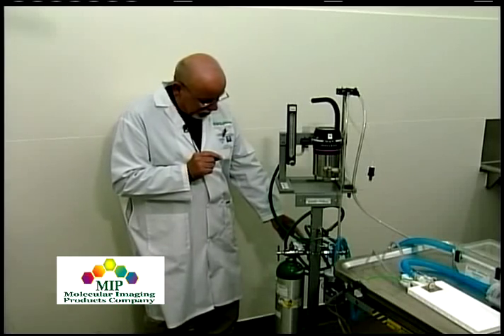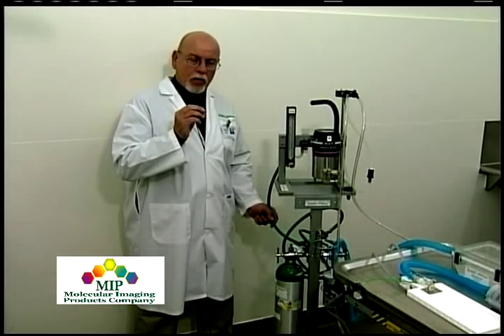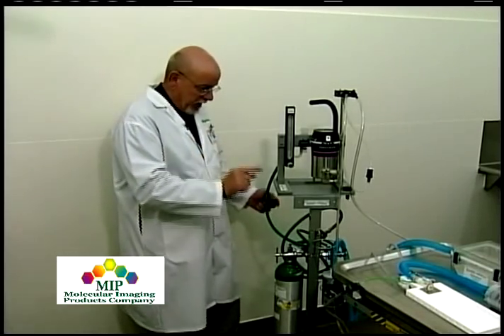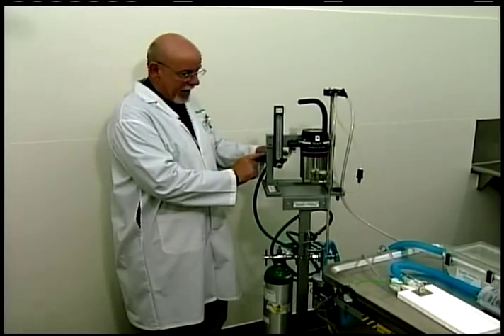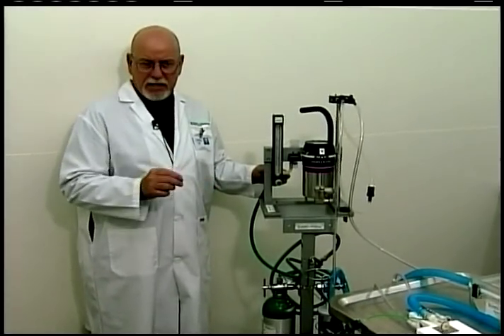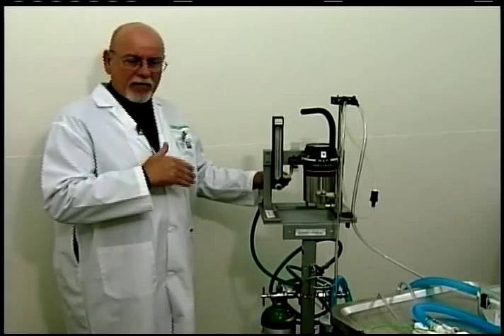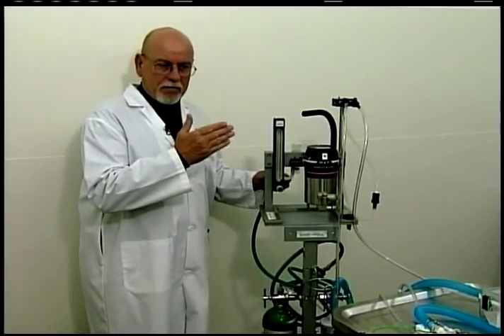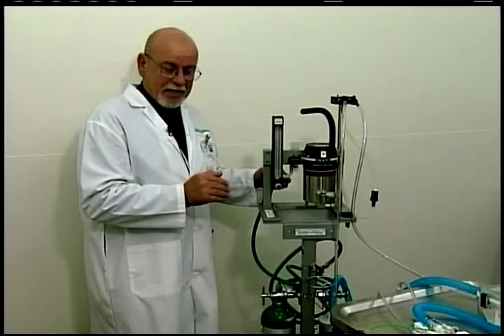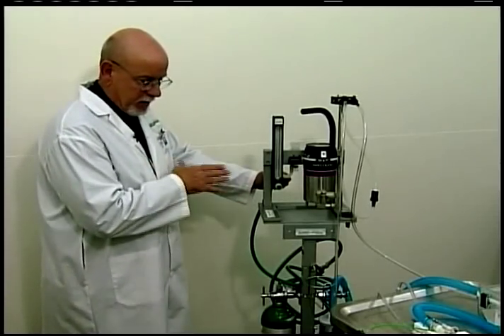After the regulator, the oxygen hose we use is a medical grade, color-coded hose with DISS fittings that will only connect to oxygen fittings, carrying 50 psi pressure into the back of the flow meter. It's important not to use clear TIGON tubing for this high pressure, because TIGON tubing is not rated for 50 psi. If the hose bursts, not only is your anesthetic procedure interrupted, but you're also at risk from a fire standpoint — you now have 100% oxygen flowing out of the broken hose.